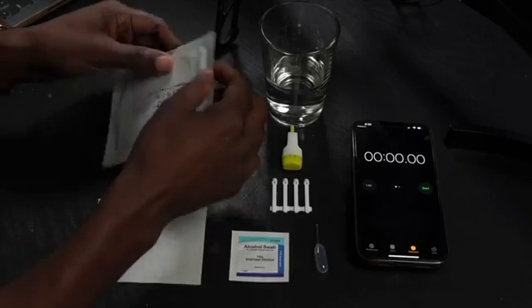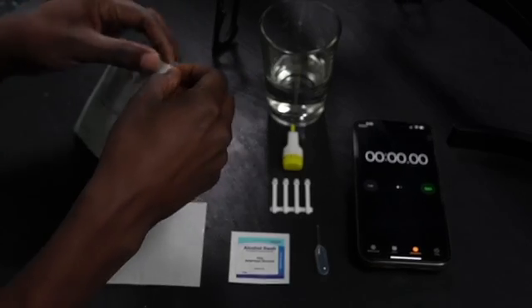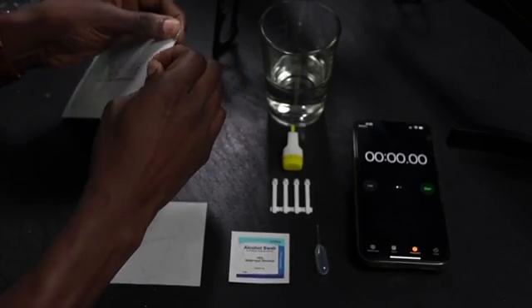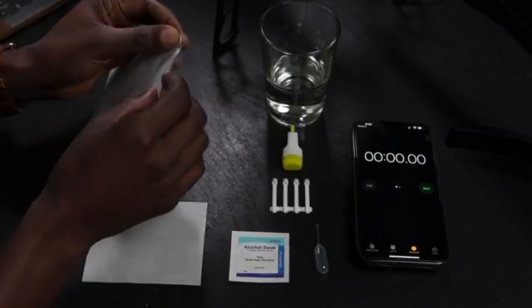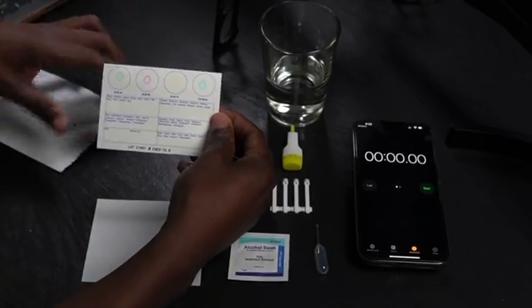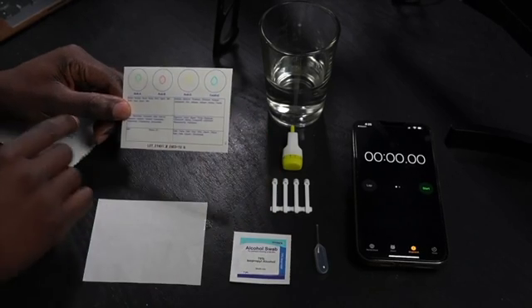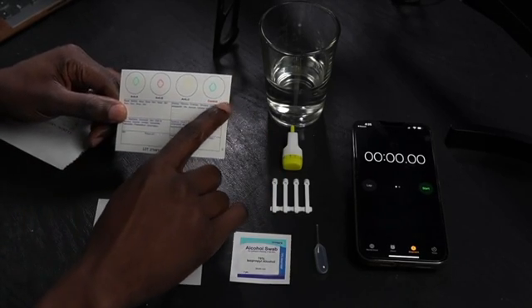All right, let's make this happen. I'm gonna go ahead and open up my Eldon card package. You wanna be careful with this because you don't wanna actually tear the card that's on the inside. So I'm gonna open that up. And there we have it. Now as you can see on the card, we have these four circles right here.